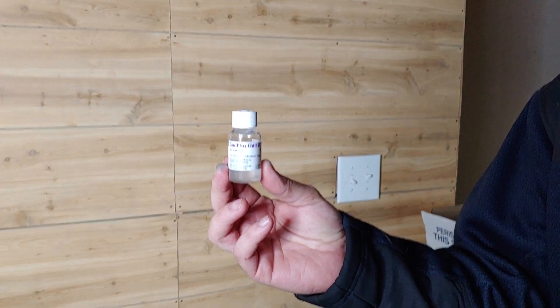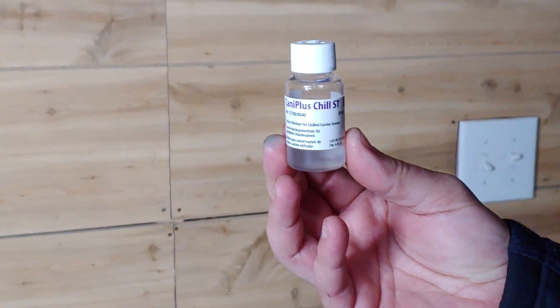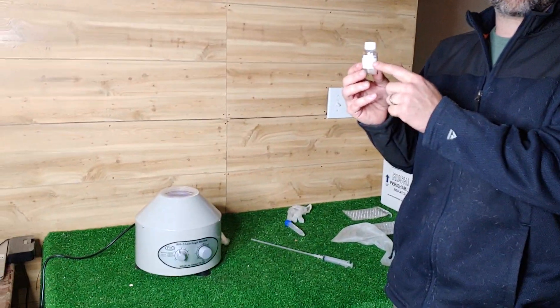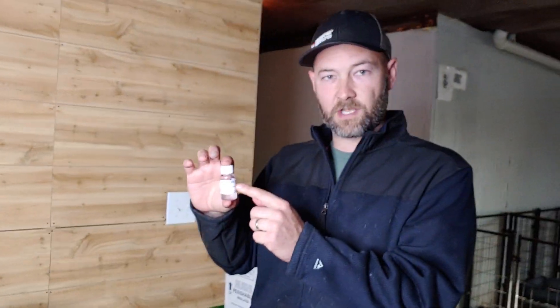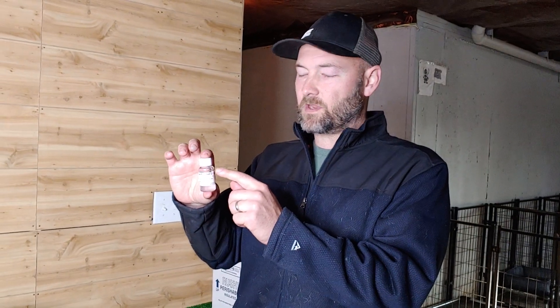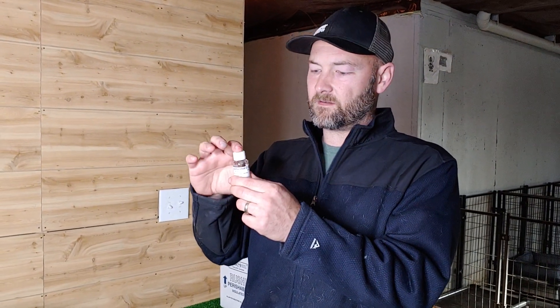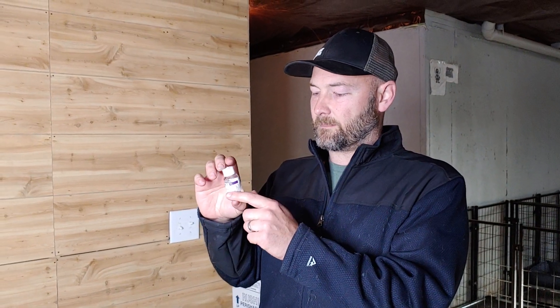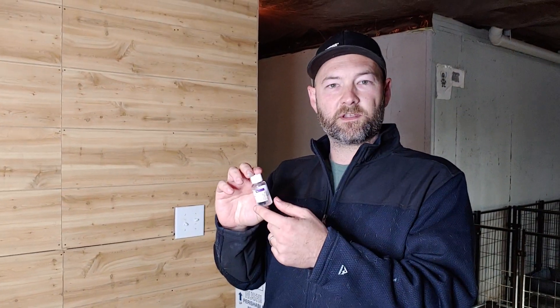Shout out to Love My Pups — they have a YouTube channel, and they sell the centrifuge, the semen extender, everything you need for dog breeding at their website, mybreedersupply.com. That's where I ordered a ton of the semen extender. This comes chilled and it lasts two years in your refrigerator. There are 20 milliliters in a bottle, and I use four milliliters each breeding, so one bottle will get you five breedings. A bottle is about $40–$45.